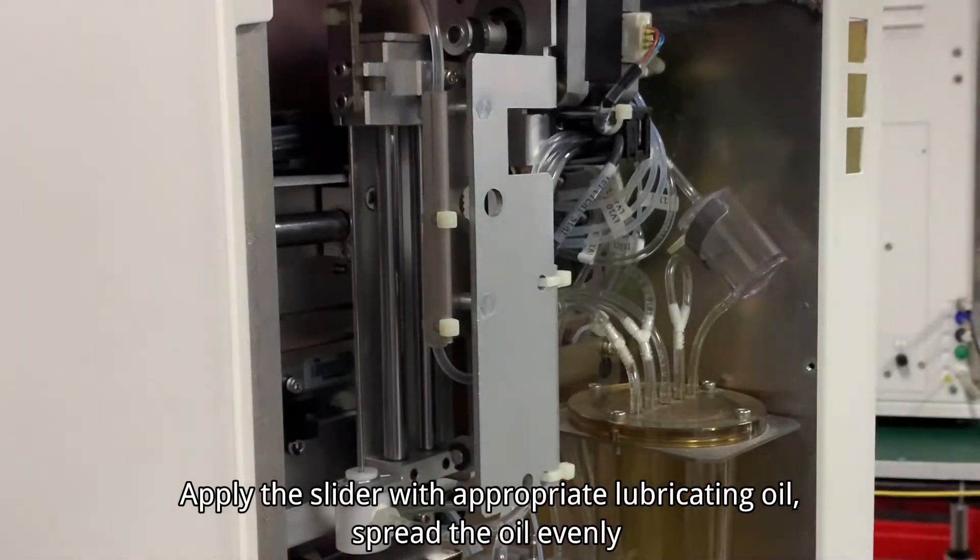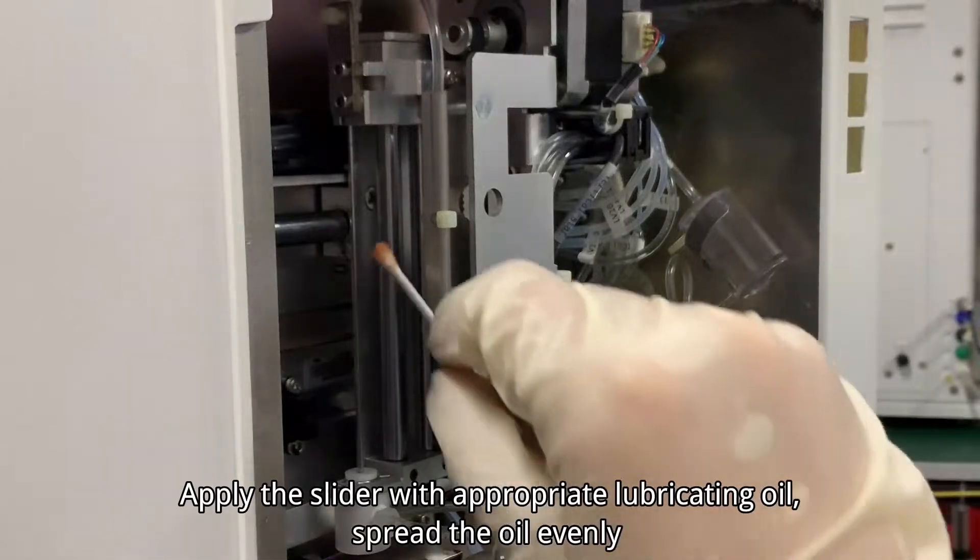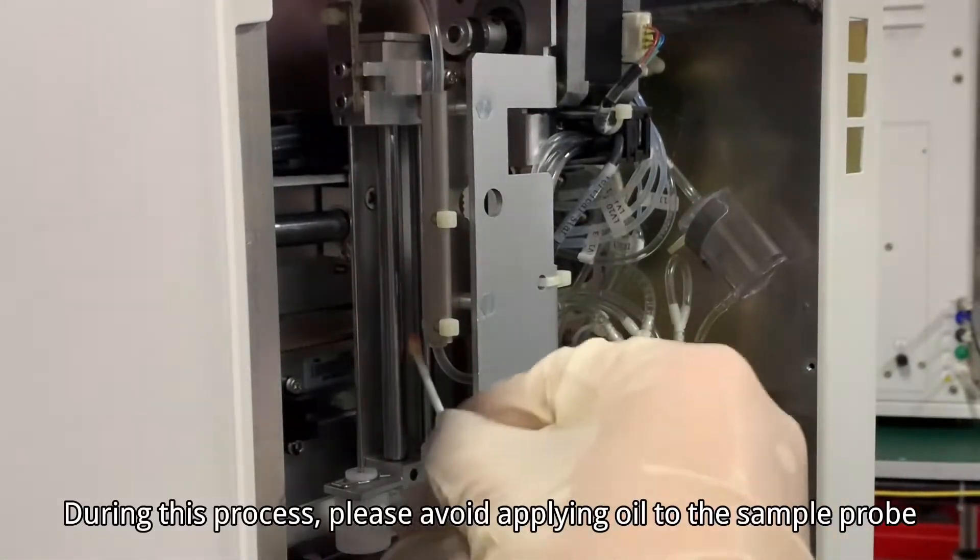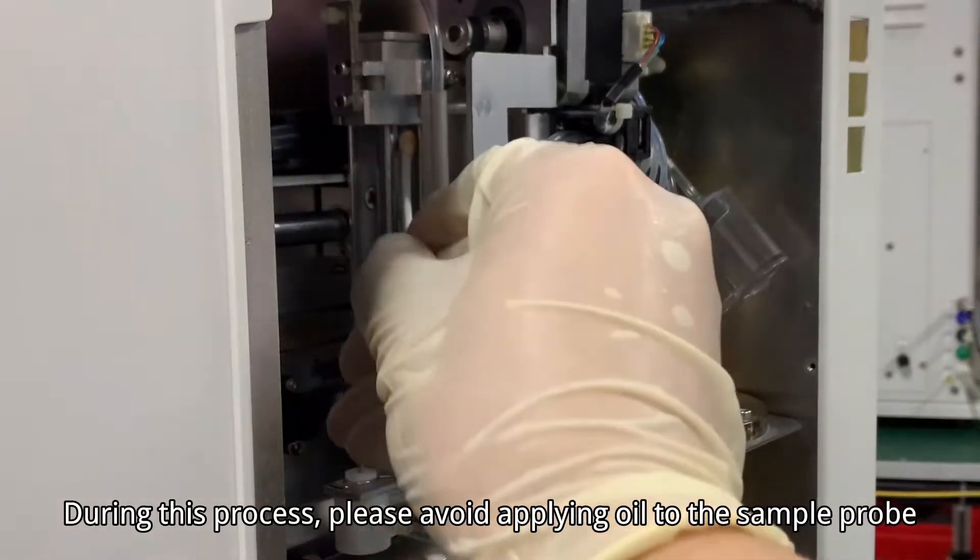Apply the slider with appropriate lubricating oil. Spread the oil evenly. During this process, please avoid applying oil to the sample probe.